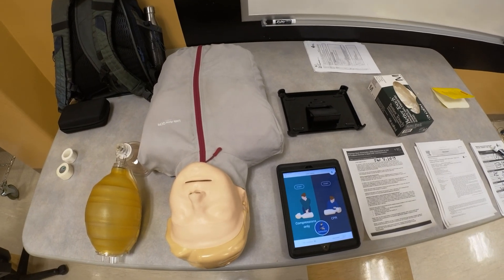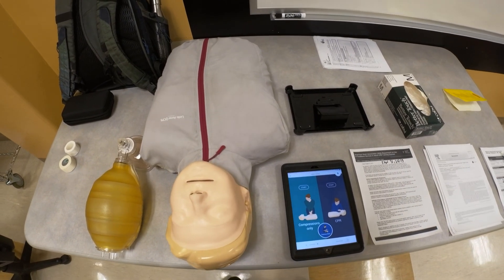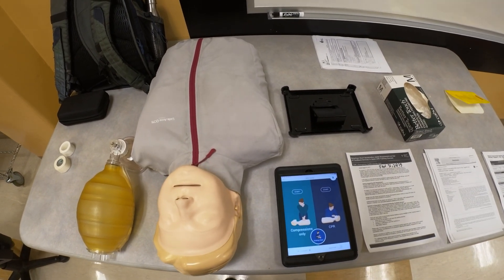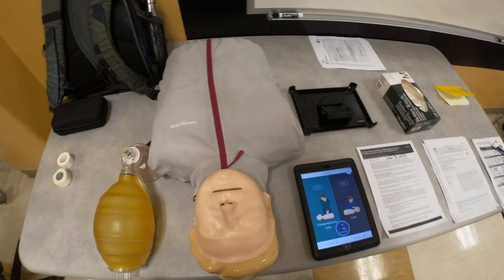Hi, my name is Nikolai Yusupov, and in this video I would like to show you the type of data that you will obtain from the QCPR app.